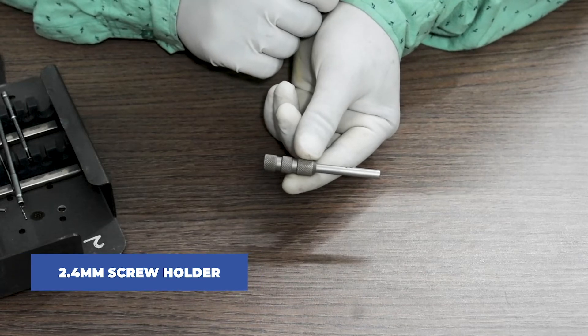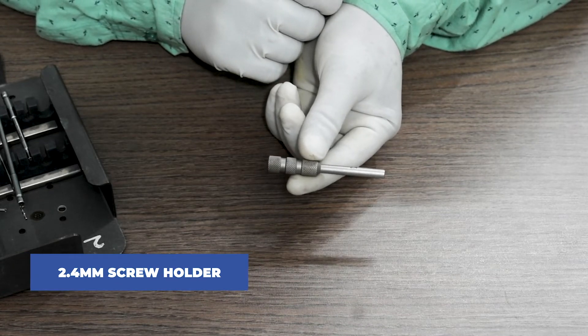This one is a 2.4mm screw holder. Again, can be used with a QC handle.